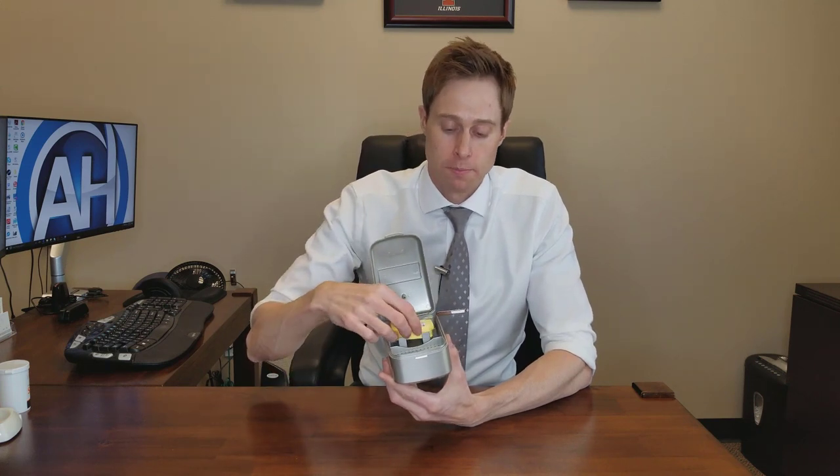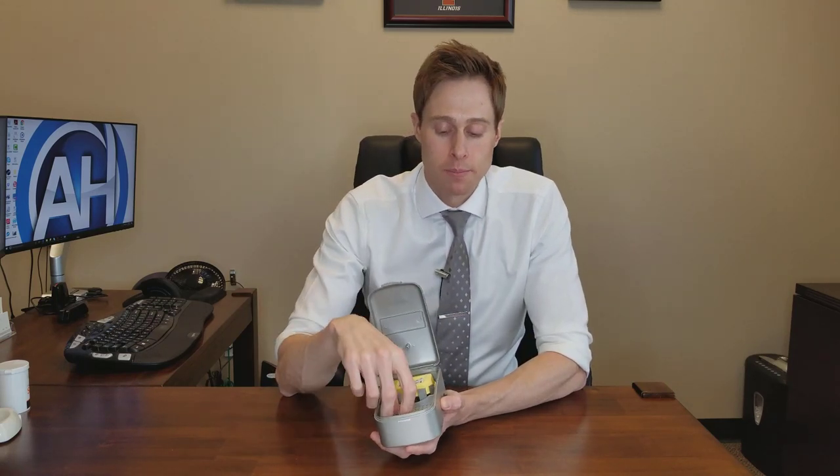The third type is basically a three-in-one device. It has a desiccant brick inside — these bricks last about two months apiece. It has a chamber with perforations that allows air to circulate, and it also warms up. So you're pulling out moisture with the silica beads, creating an evaporation effect, and forcing air through the device to push out any moisture inside. You take your hearing aid, open the battery door, set it in the tray, close it, plug it into the wall, hit the button on the side, and it lights up green, circulating warm air and pulling out moisture for eight hours.